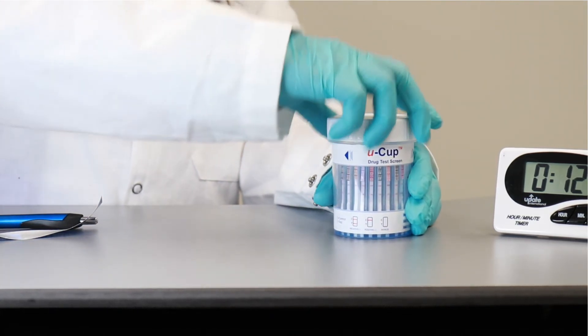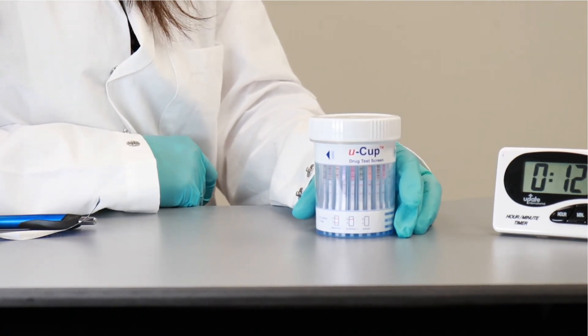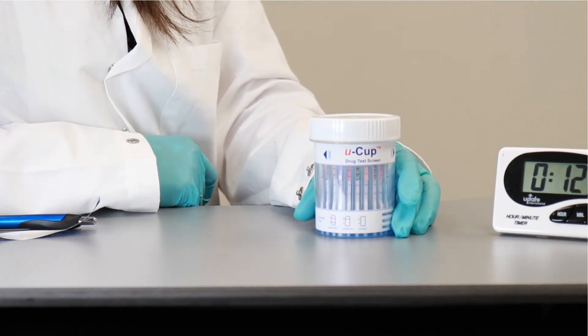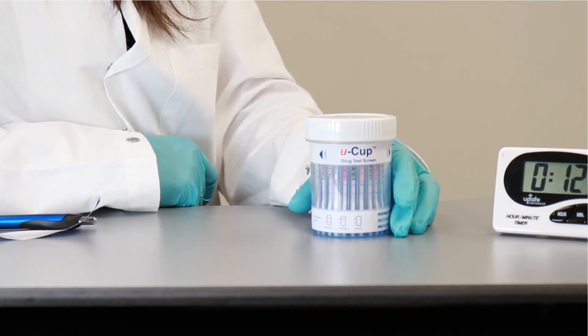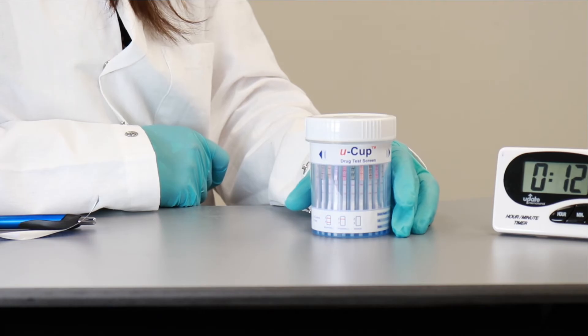So the test is done. If in case there is a chance that the test is positive, then this is a presumptive test. So you're supposed to send it off to a confirmation lab for confirmation testing.